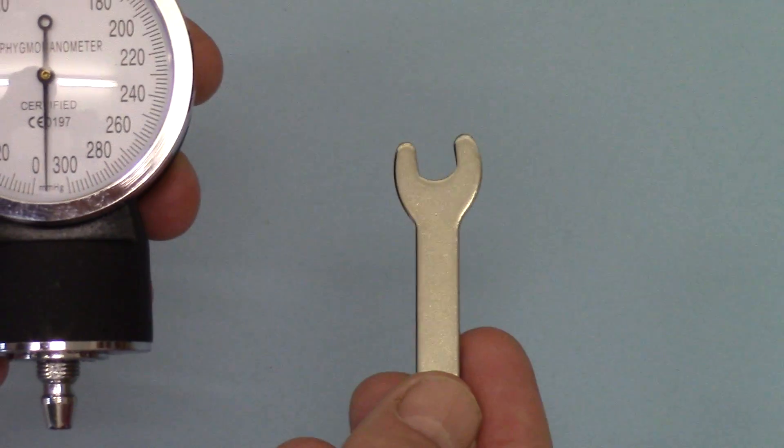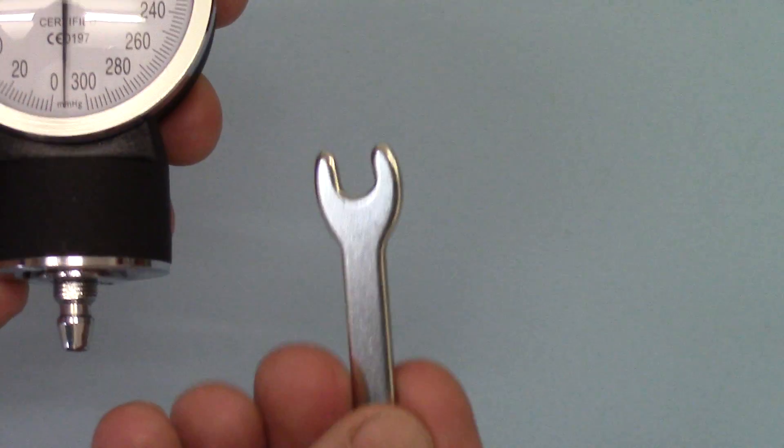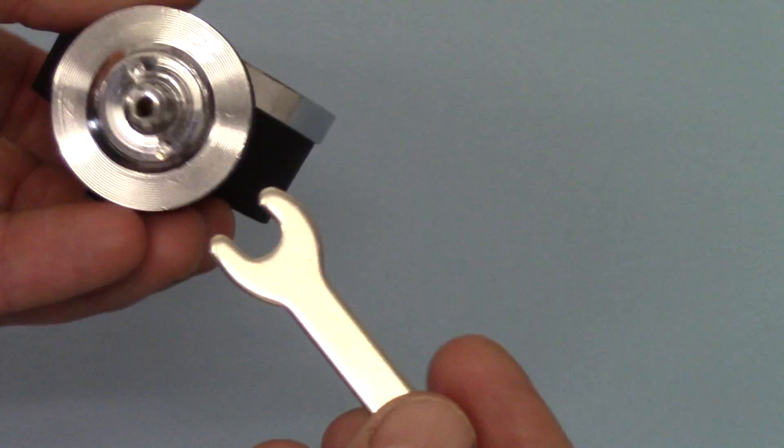So each one of these units comes supplied out of the box with a little spanner device and there are instructions in there but we're just going to show you how this works.